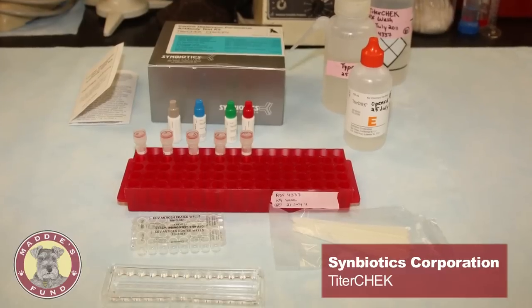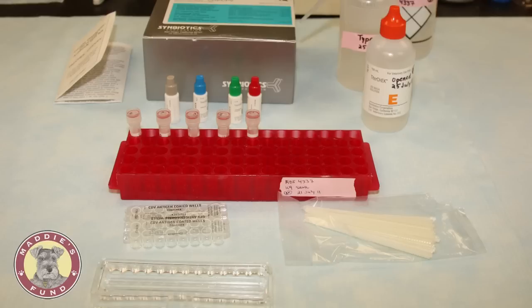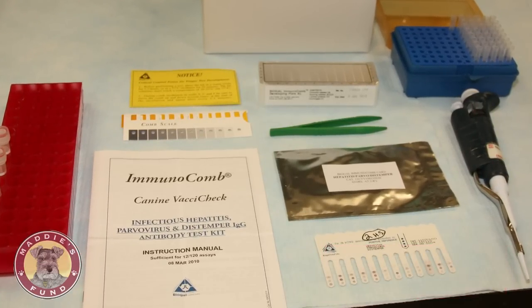In-clinic or on-site antibody titer tests are tests that are available to be used immediately in a shelter or in a clinic. You don't have to send it out to a lab and you can get results in a matter of minutes. They are designed to measure the concentration of antibodies that an animal has to a particular disease, say canine parvovirus for instance. What we're really interested in is knowing whether that concentration of antibodies is sufficient to prevent infection if an animal comes in contact with the disease.